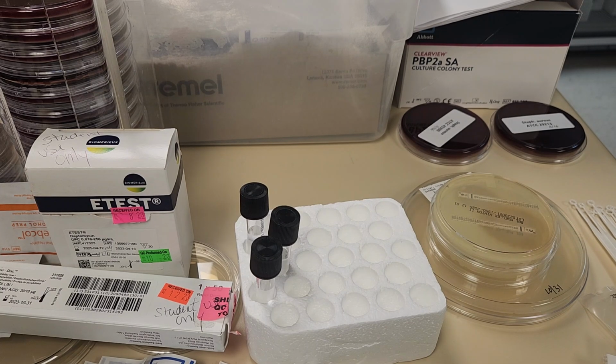Okay, today we are going to work on a virtual lab on susceptibility testing. We're going to really discuss the susceptibility testing that is done manually in a laboratory. There's a couple of rapid tests that we will do, as well as set up and interpret susceptibility testing that is done manually. Really, in most clinical labs, most susceptibility testing is done using commercial systems. But today we're really just going to look at some of the manual setup and interpretation of susceptibility testing that we can do outside of commercial systems.